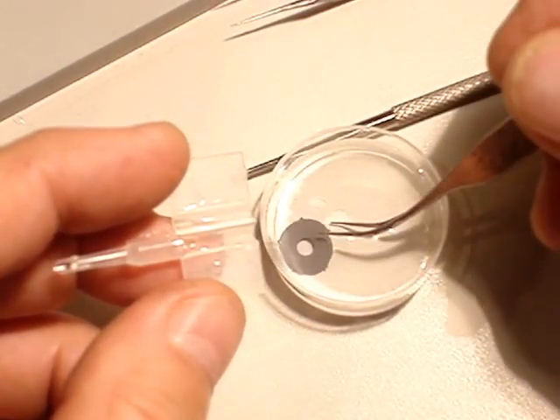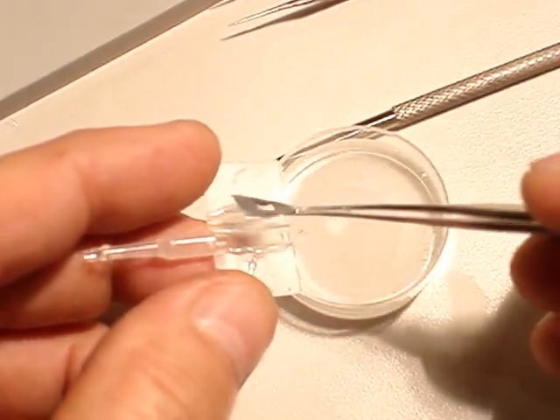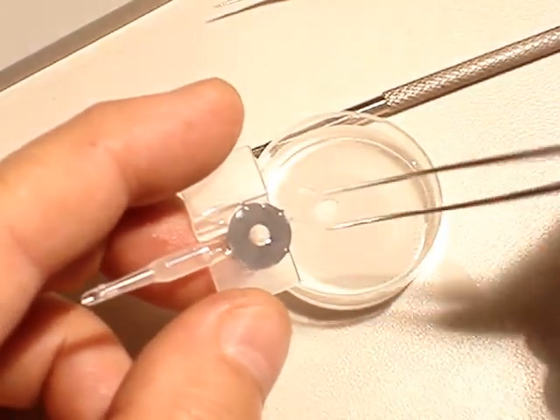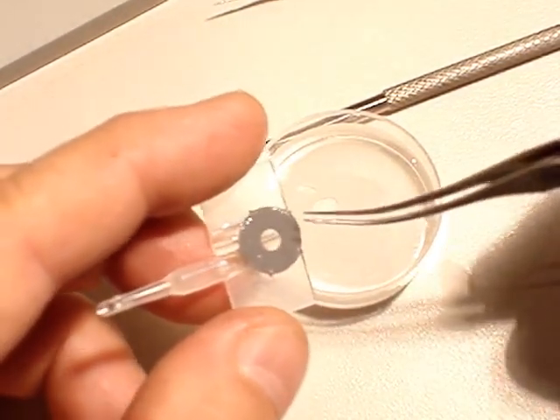Catch the implant from the BSS saline solution that was resting to remove any residue from the sterilization procedure.